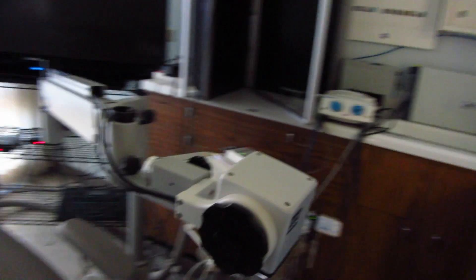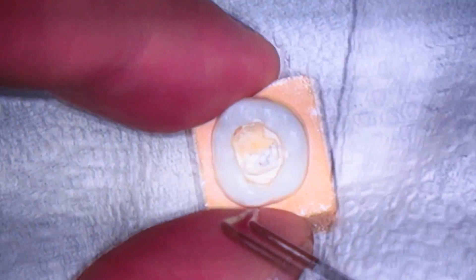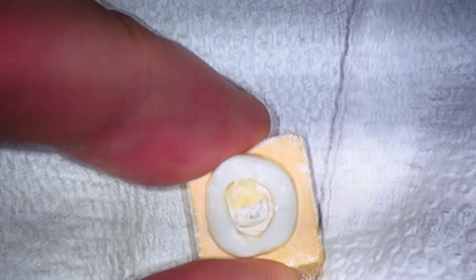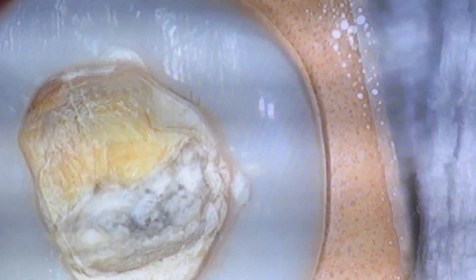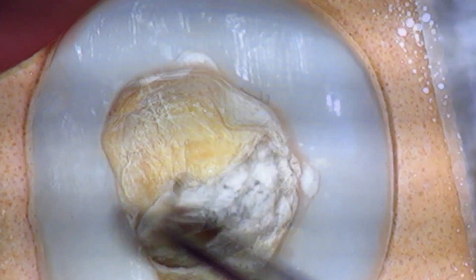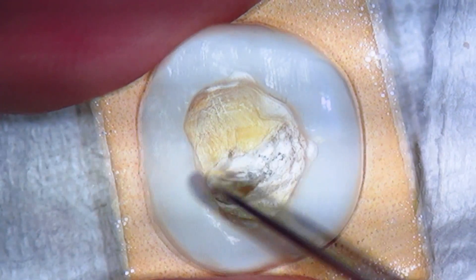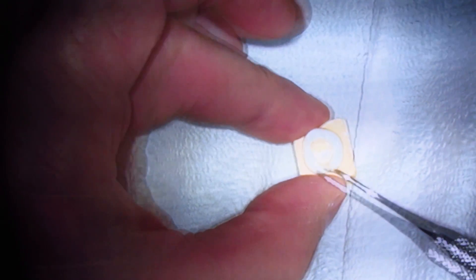I want you to zoom out. Is that too fast? That's pretty fast. Zoom in. That's a good speed, isn't it? Zooming out is... That's a rocket ship. But are you sure it's too fast? Because you want it to zoom in slowly, but when you're zooming out you just want to get out of there. Not necessarily — because let's say I'm working at the depth of a cavity and the patient's moving around or breathing and I just want a little bit. That wouldn't be bad, but when I move all the way out, yeah, you're right. I just want to get out of there. So I can slow it down a little bit. You think that'd be wiser?